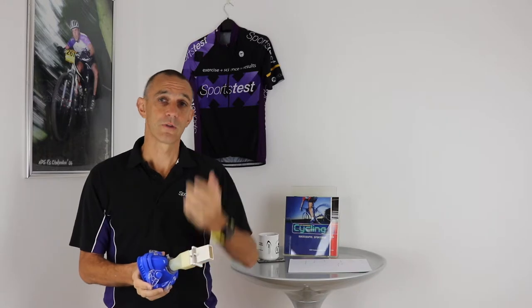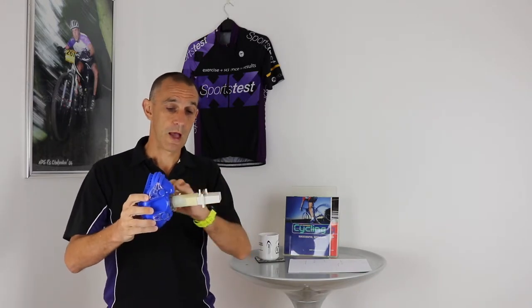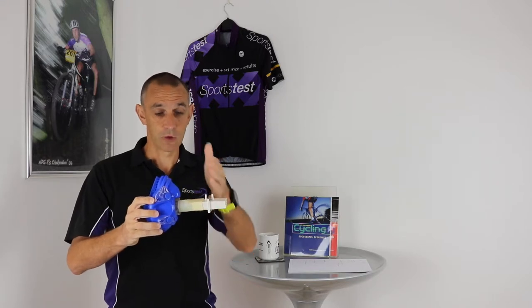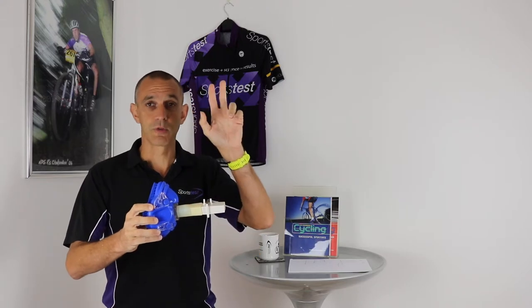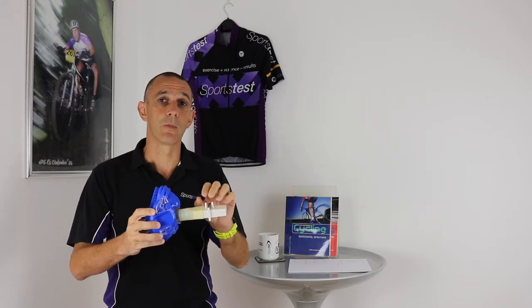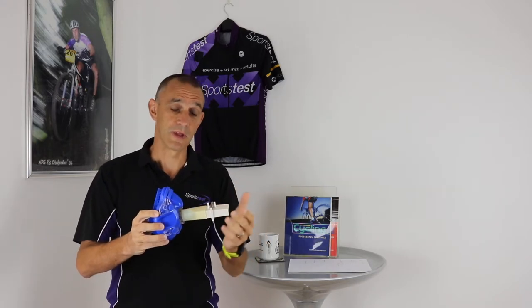The whole system creates a seal around your mouth and nose. This area has a small sensor that detects the volume of air going in and the volume of air going out, and there are two tubes coming out of it that constantly draw a sample — either the air going into the lungs or the air you're breathing out.